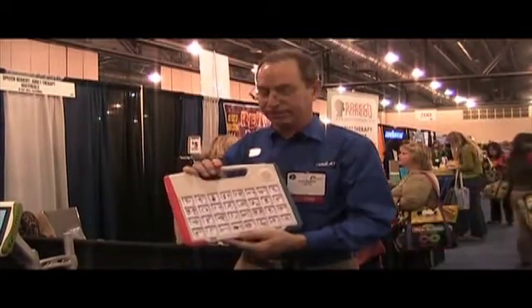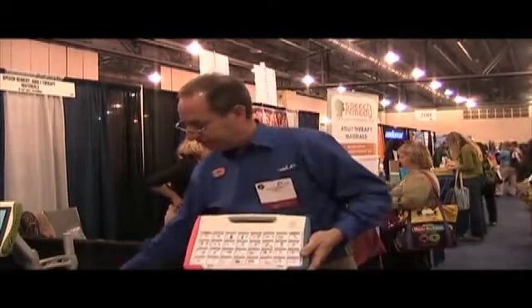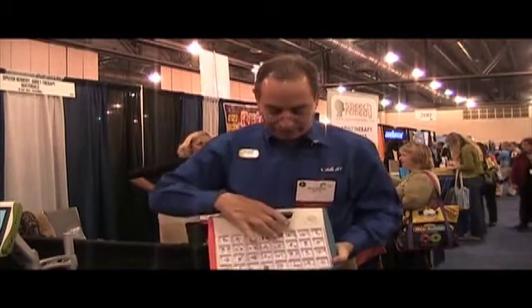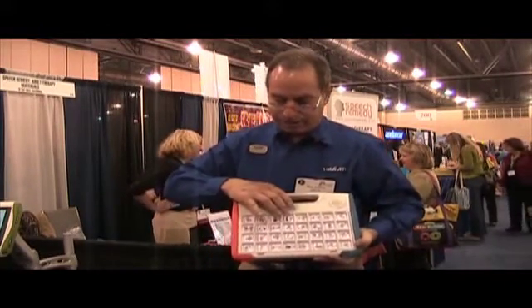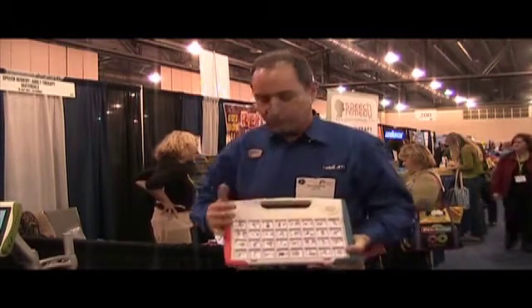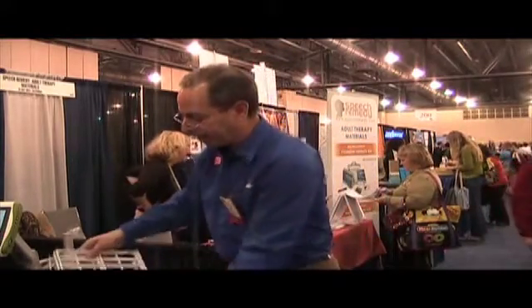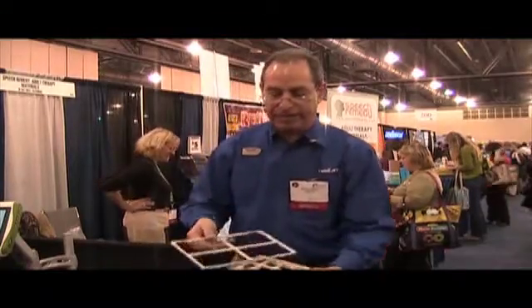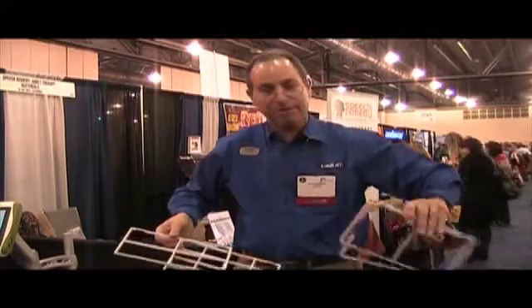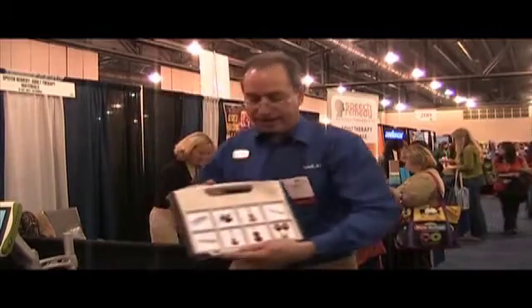This is the S32. This is the newest addition to the hardware of the Tobii family. As you can see, it uses paper overlays and a barcode — there are no knobs, nothing to press. So let's hear it: 'I need to talk to you. Ask me yes or no questions.' So we call it S32 because it's got 32 squares here. But it comes with grids and key guards for six different sizes, giving you all the different key guard sizes. And here's just another one with eight on it.